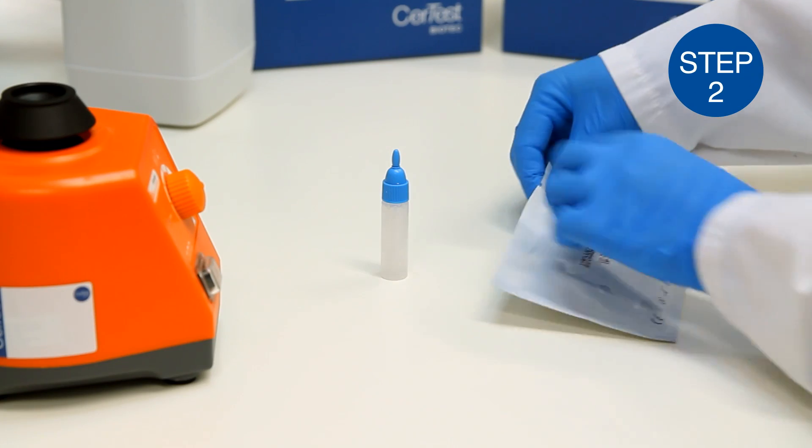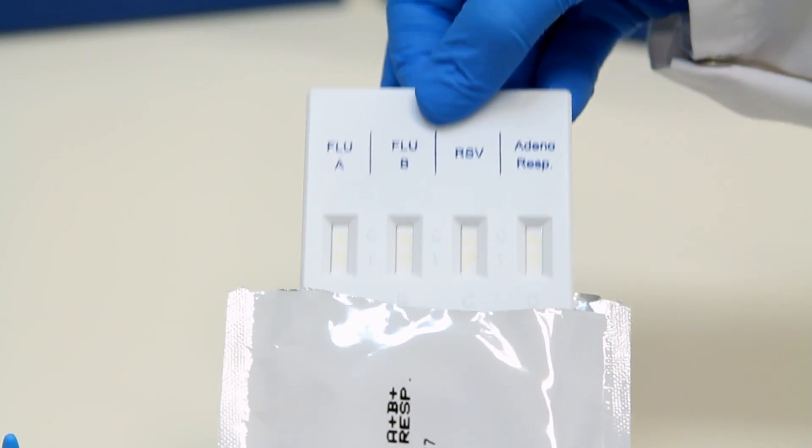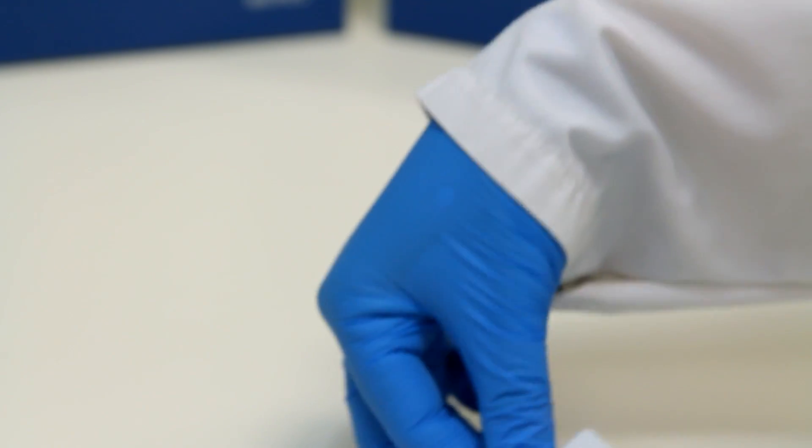Step 2: Remove the combo card test from its sealed pouch just before using it.